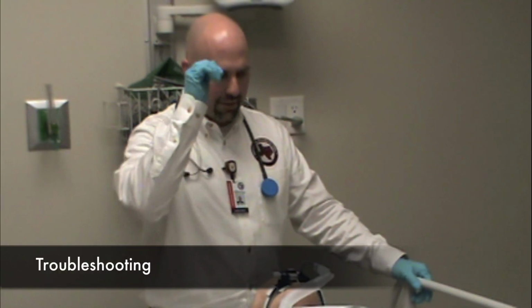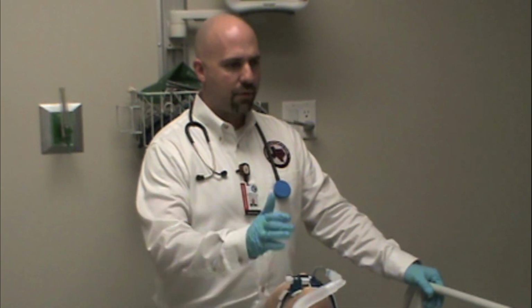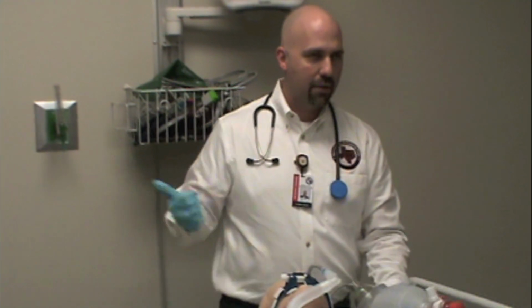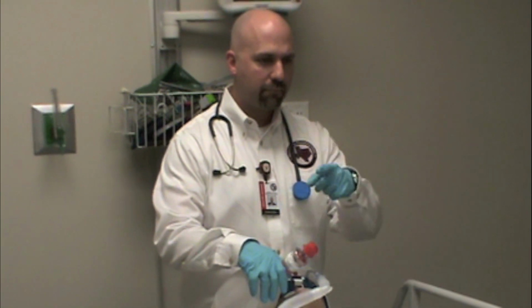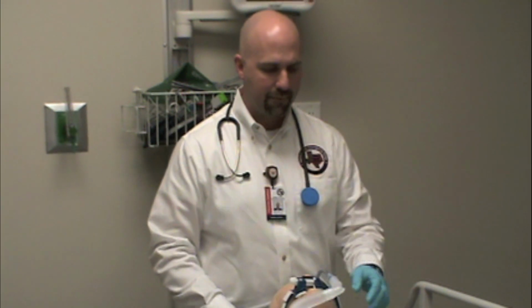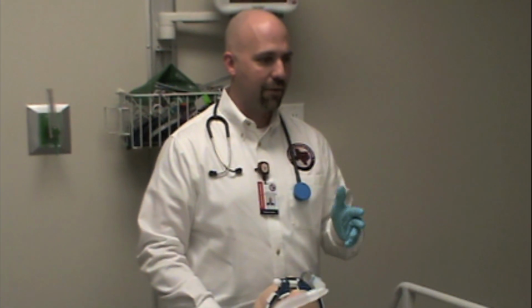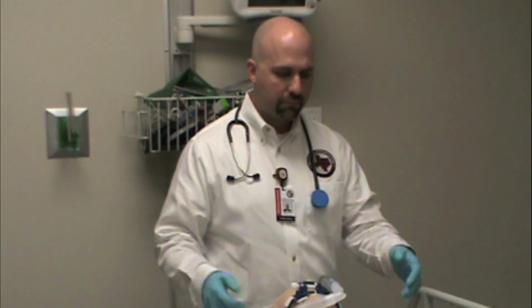So, some troubleshooting things. You never want to troubleshoot a ventilator problem with a patient attached to the ventilator. So if you start noticing that you have vital signs changes, you would want to take your bag valve mask, hook it back up to your oxygen source, take the patient off the vent, and bag them while you figure out what your problem with the ventilator is. It's always a really bad idea to try to troubleshoot the vent with a patient attached to it. Although it sounds kind of intuitive, you'd be surprised how many times patients will be on the ventilator and their vital signs are changing, and they know it's an equipment problem, and they don't know what to do, but they don't take the patient off the vent. Easy thing to do.